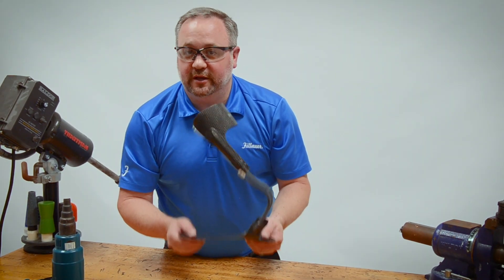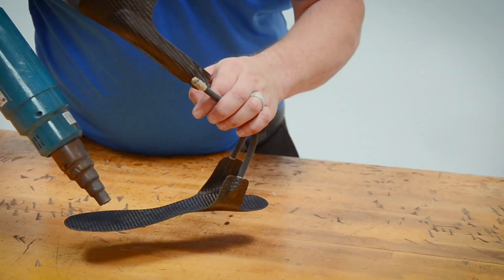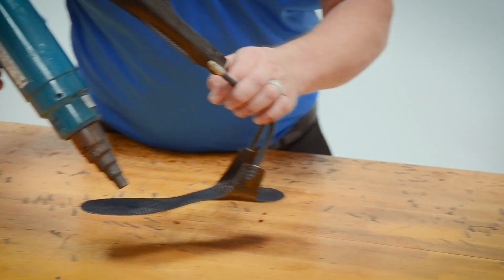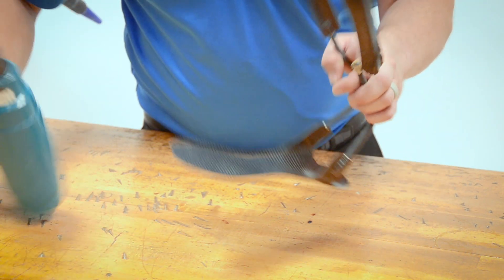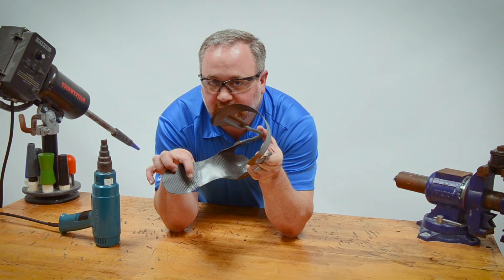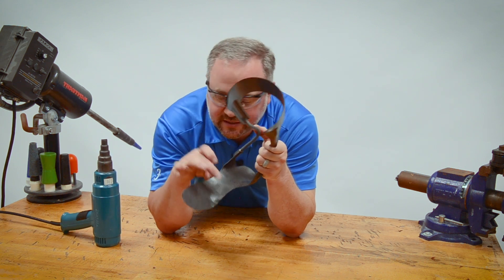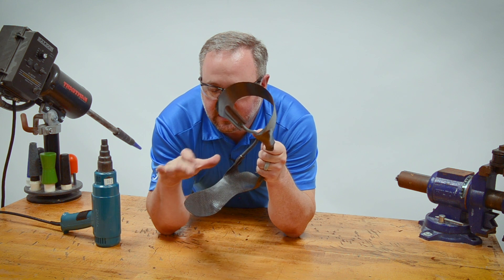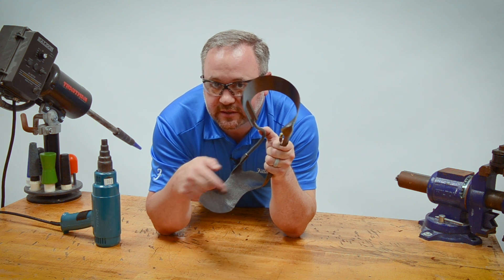The only other thing you really don't want to do is put a big dimple in the foot plate. This is a pretty common one — we'll have them come back for this. Somebody will decide they need a relief on the bottom of a foot, so they'll heat there. One thing that carbon composites don't do well, regardless of what you choose, is this kind of modification. You'll see I put a nice big divot in there — basically I just created a failure spot for this brace. If I don't want brace there, I'm going to have to trim it off. What will happen as soon as this cools off is I could grab this and snap it, because I've created a 3D shape within the carbon fiber. Those are things we do not want in high stress areas like right at the metatarsals.